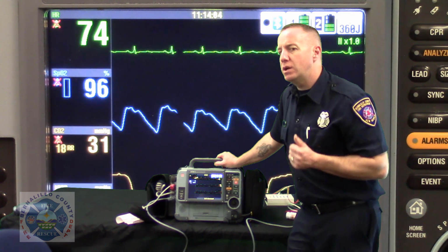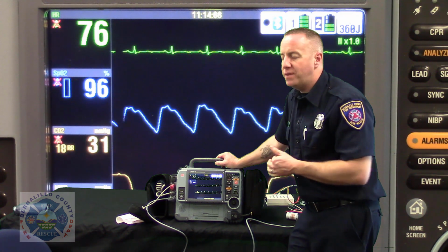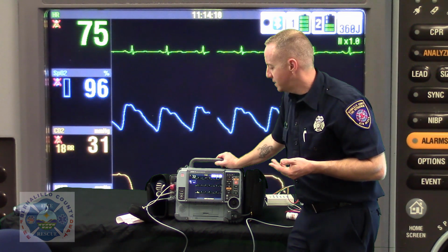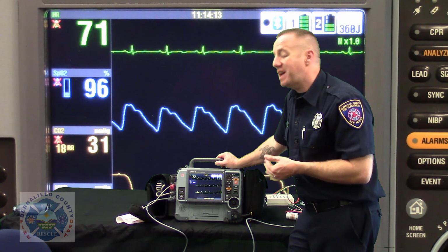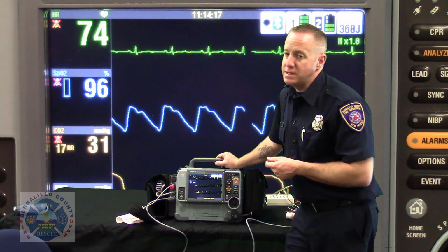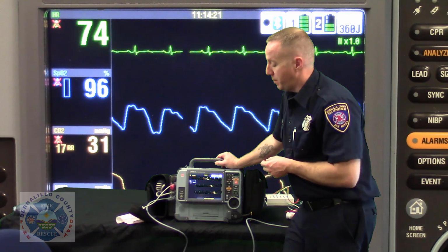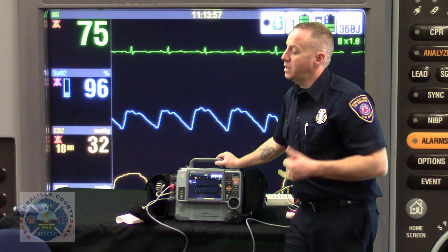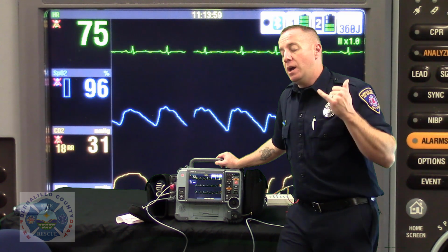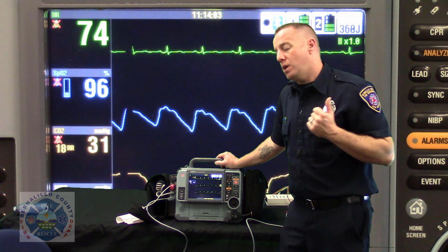If you get really, really good at this, I'm here to tell you that you can transmit a 12-lead, if it's a good, clean, interpretable 12-lead. Transmit that from the living room of the call, and we'll get into transmitting EKGs here shortly. I've been on the phone with the hospital, and I'm sitting with the patient, and I'm saying, I'm sending a STEMI in with Albuquerque Ambulance Unit 3054.